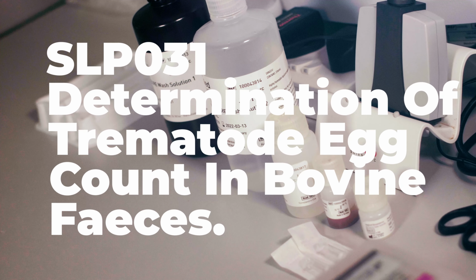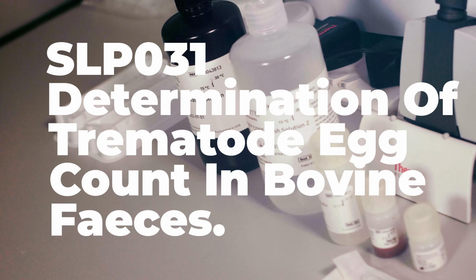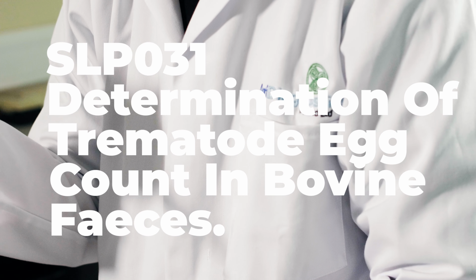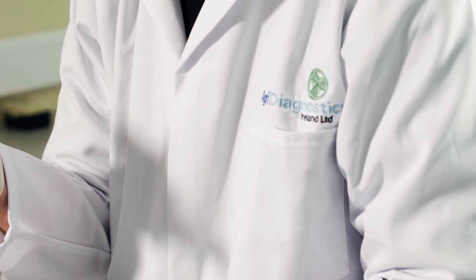In this video, we'll cover the technique for SLP-031: Determination of trematode egg count in bovine feces at the Agri Diagnostics laboratory.